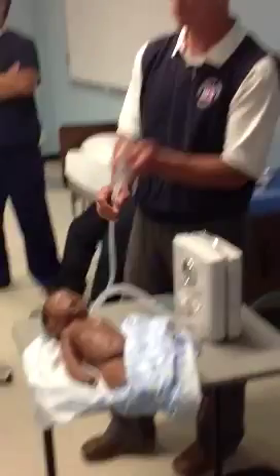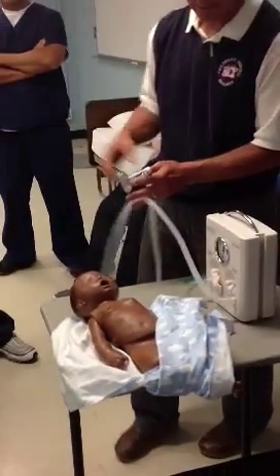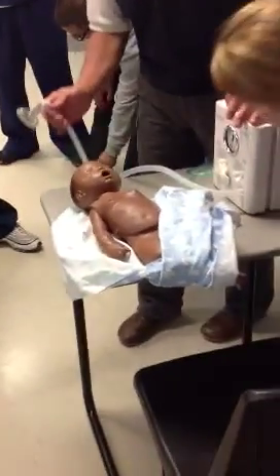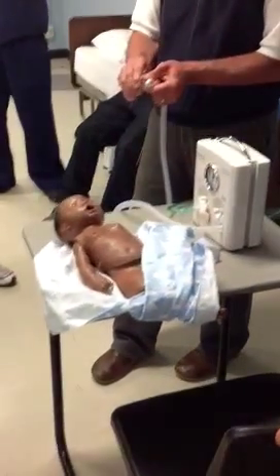There's no variation between breaths, because there's no human intervention. It comes with this tubing which connects to the device. You turn the flow on from the wall, which connects here. It has a manometer that you use as well. I'm going to hold it on the baby now and show you how you check your PIP and PEEP.